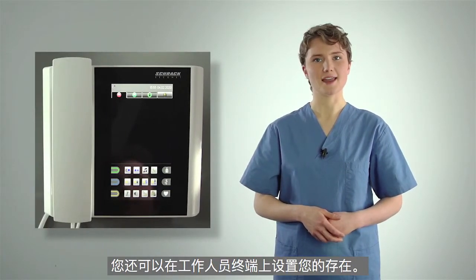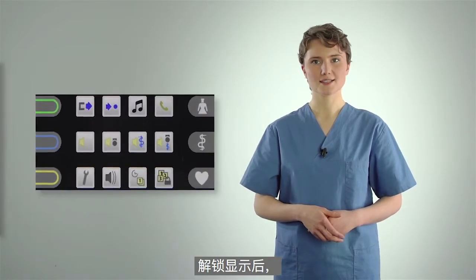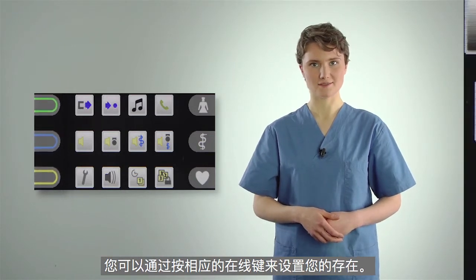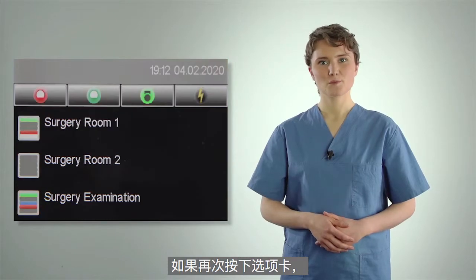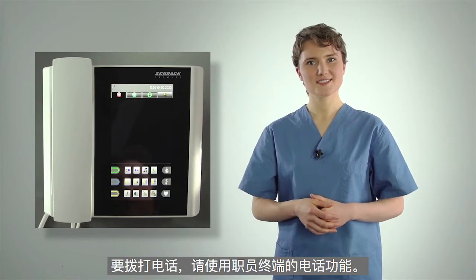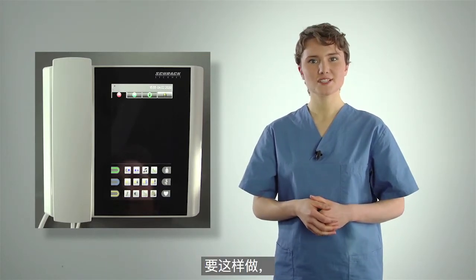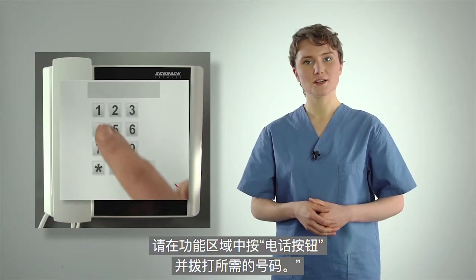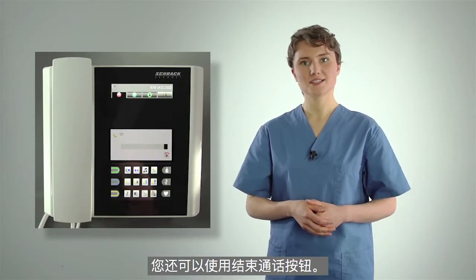You can also set your presence on the staff terminal. After unlocking the display, you can set your presence by pressing the appropriate presence button. If you press the tab a second time, you'll see an overview of the whole ward. To make a telephone call, use the staff terminal's telephone function. Press the telephone button in the functions area and dial the required number. To end the call, you can also use the end call button.